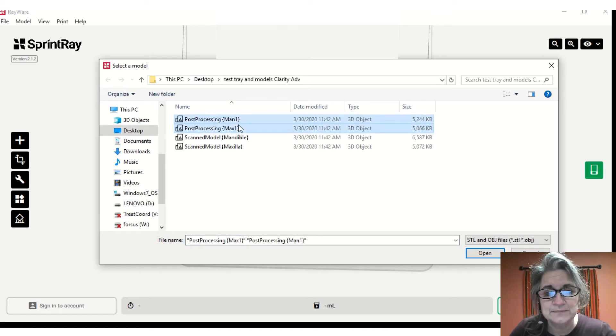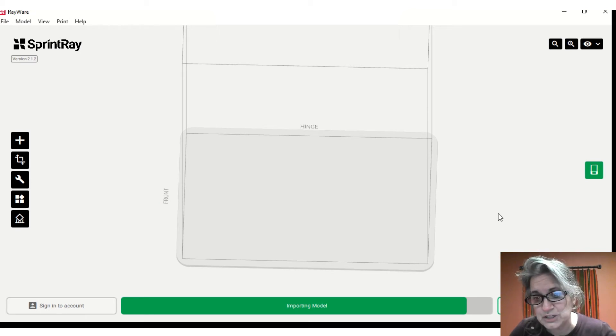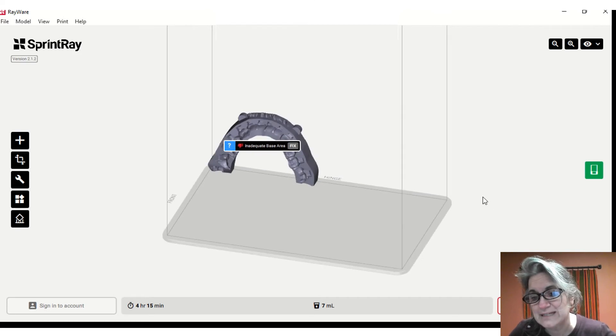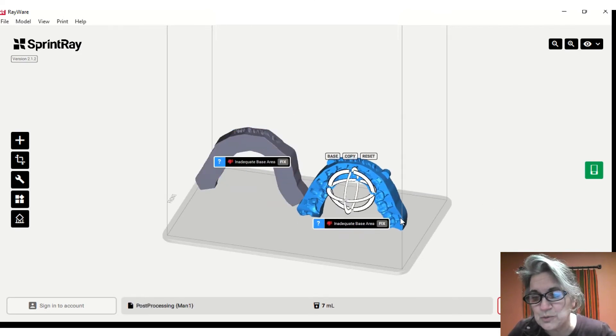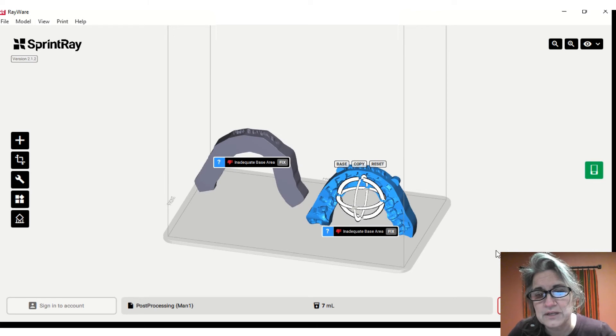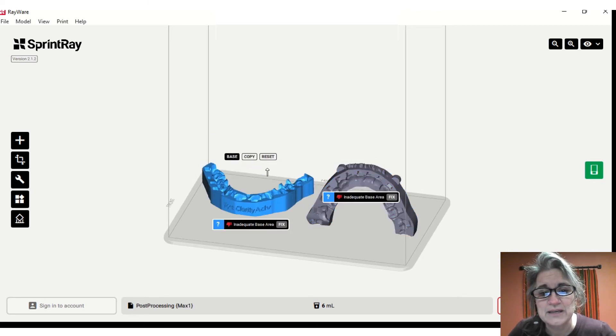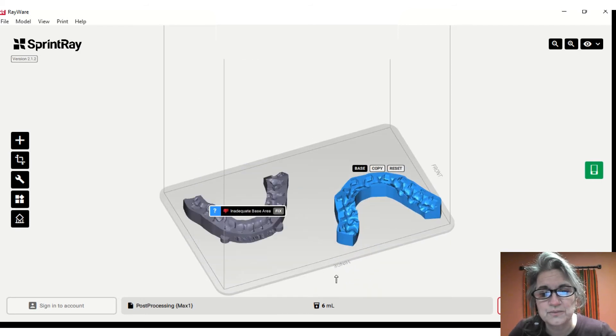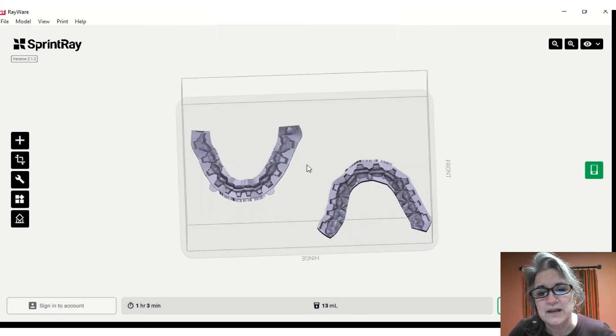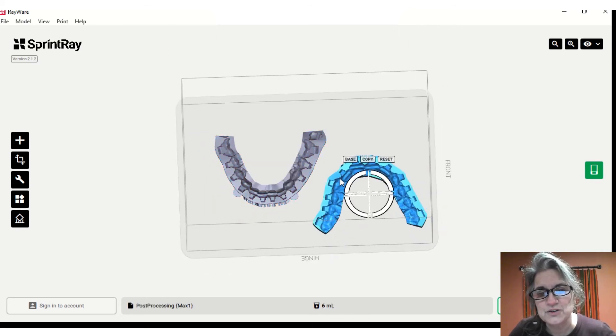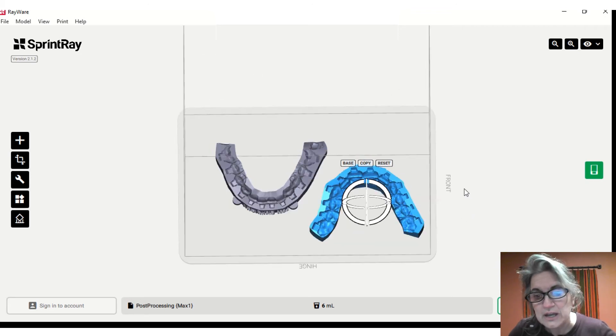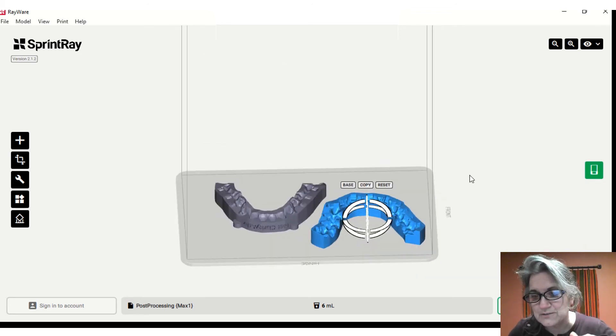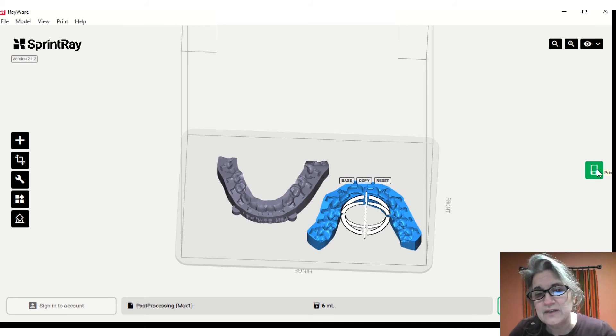You'll see both the mandible and the maxilla. Those are going to be placed on the print platform in vertical position, but I prefer to print them horizontally and flat to the print platform. Some people will use supports, but I found success without. You're going to toggle on so that you can then select the base. It'll sit both of your trays to your print platform. Also check underneath - I'll roll the plate over to make sure that I can see an entire horseshoe. If you don't see an entire horseshoe, that means you're not directly flat on the plate. Go ahead and try to base it again.